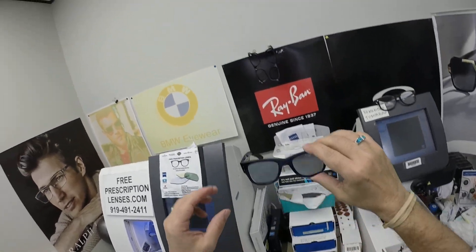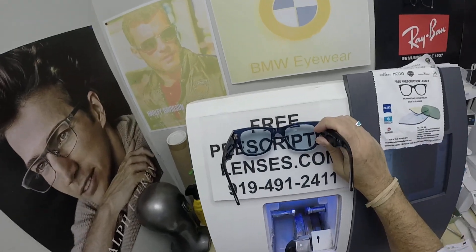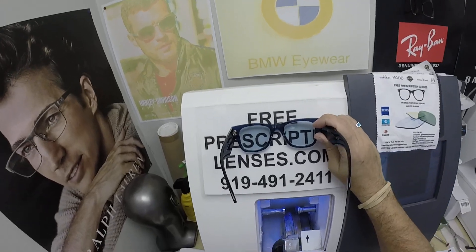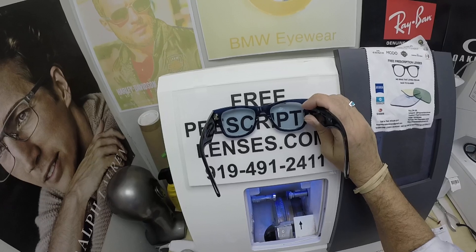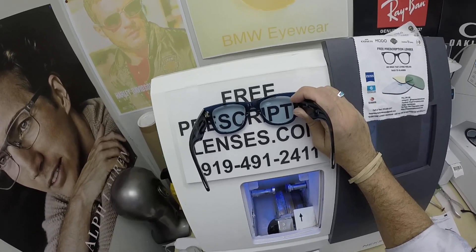So this is what his lenses look like. It's about 80% blue, 20% gray — not a true blue, not a true gray. Zeiss has their own internal color code for it, that's how we order them. Jigsaw can help you through that — he's also the lens stylist and frame stylist, and we'll get to that.